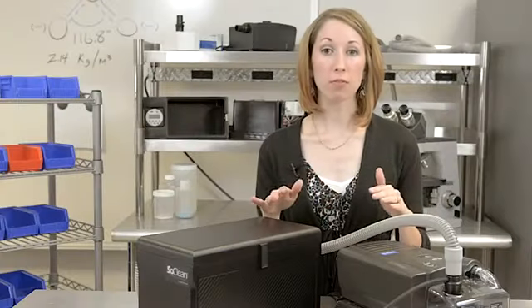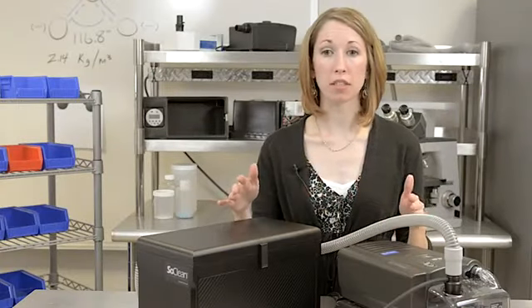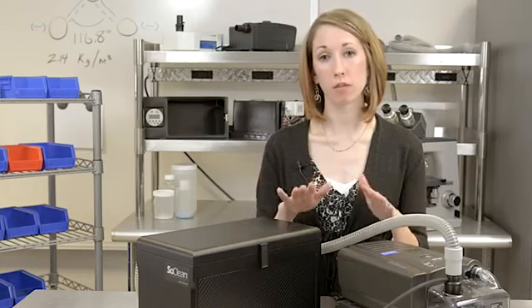All it takes is a 5-15 minute run time followed by a 2-hour resting period to get your CPAP equipment cleaner than you've ever experienced.